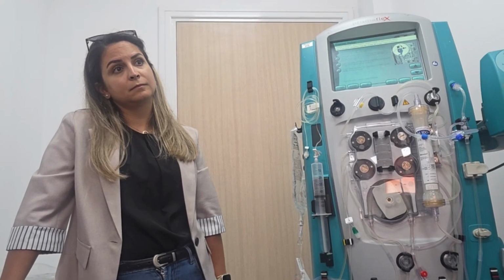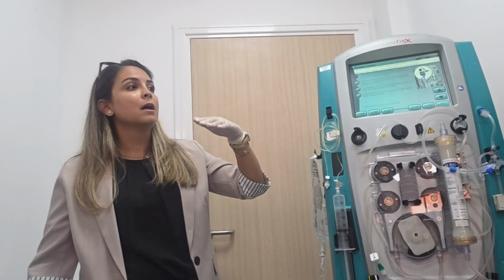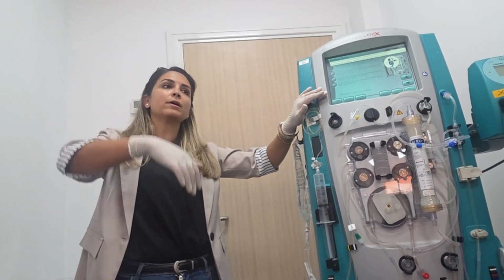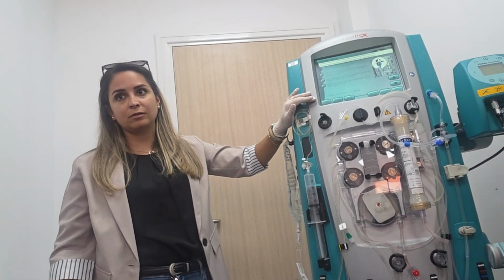More than 4 hours, no. More than 2 hours, lesser than 4, he told you to do the repriming again, same, and start. Remember, I did that. And keep it ready. If the patient, let's say, comes back after another 1 hour, reprime it again. So with fresh saline in the set, you can connect the patient. But if your policy says more than 4 hours you have to discard, it's okay, this is your policy.